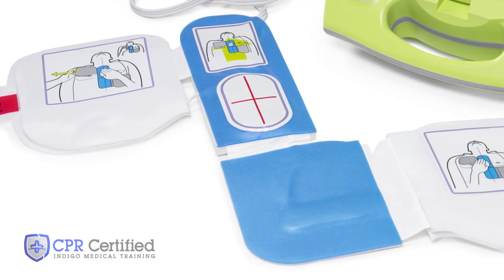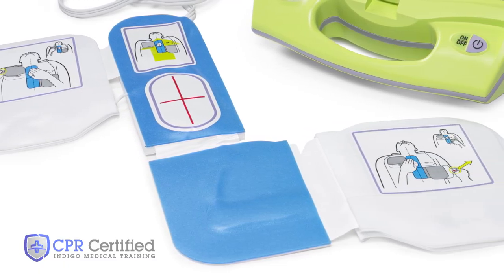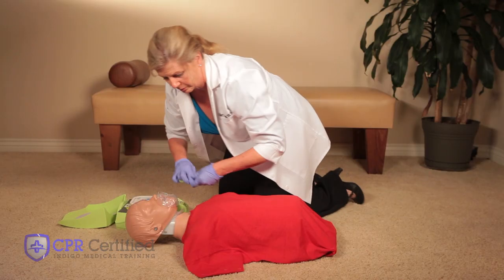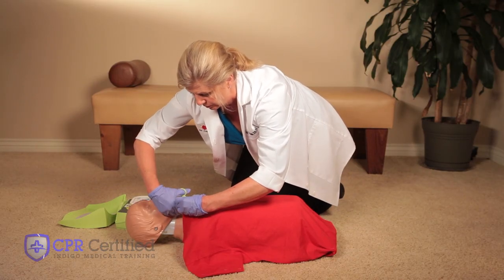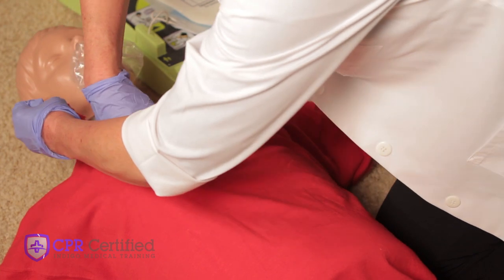The pads have a diagram on them indicating where to place them, but before you can do that, you will notice that scissors are provided to cut the victim's shirt off. If your AED doesn't have scissors, tear the buttons off the shirt.